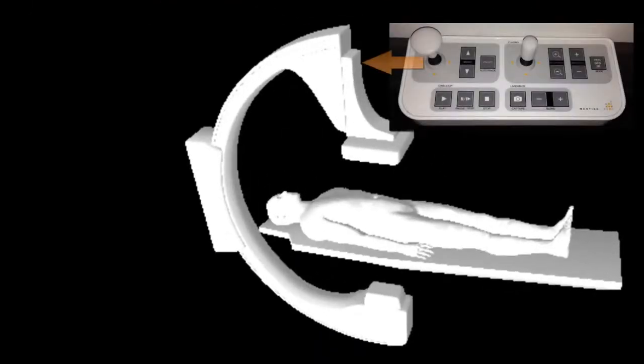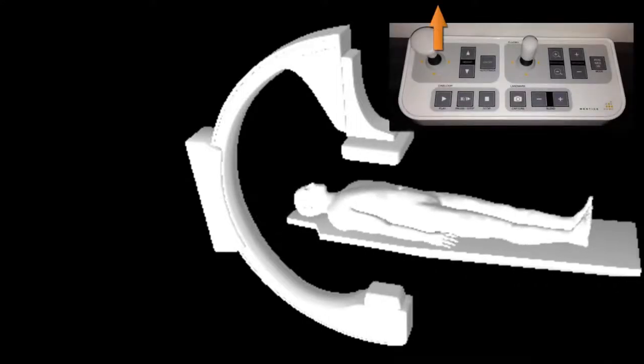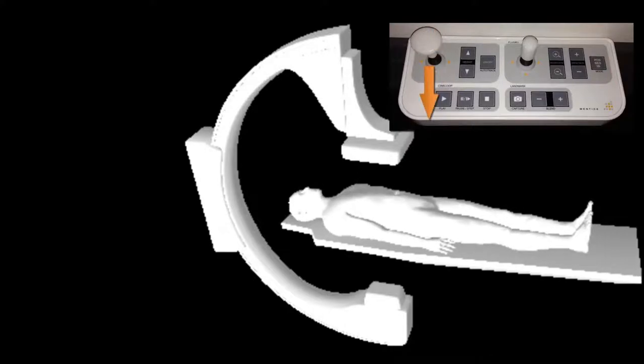By moving the left joystick to the left, the table with the patient moves to the left. By moving the left joystick to the right, the table with the patient moves to the right. By moving the joystick up, the table moves up, and by moving the joystick down, the table moves down.